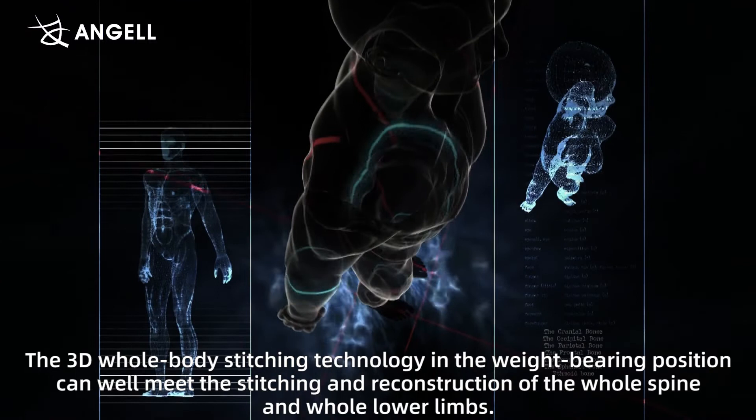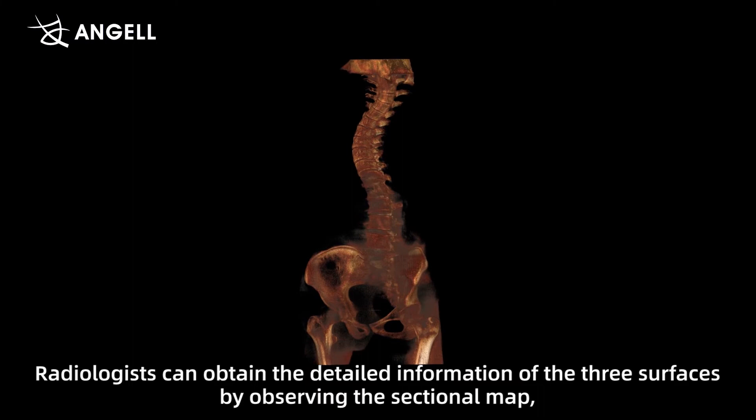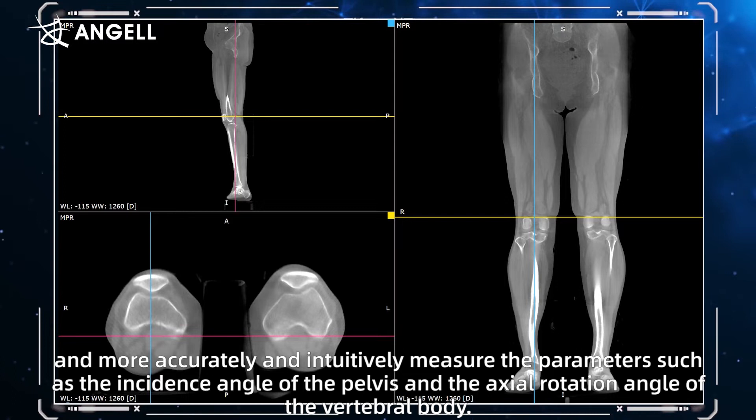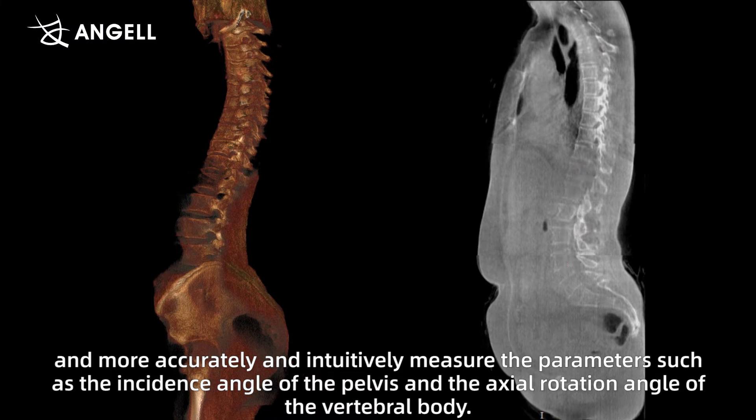Radiologists can obtain detailed information of the surfaces by observing the sectional map, MPR map, or VR map, and more accurately and intuitively measure parameters such as the incidence angle of the pelvis and the axial rotation angle of the vertebral body. This effectively completes the human body information evaluation under the standing state, so as to enrich the clinical information.